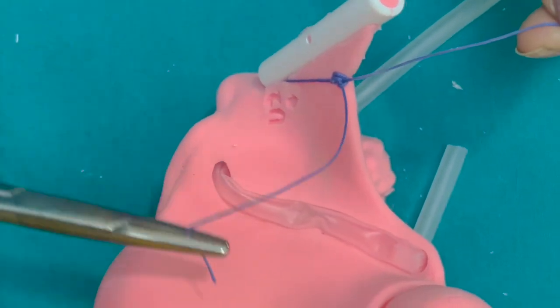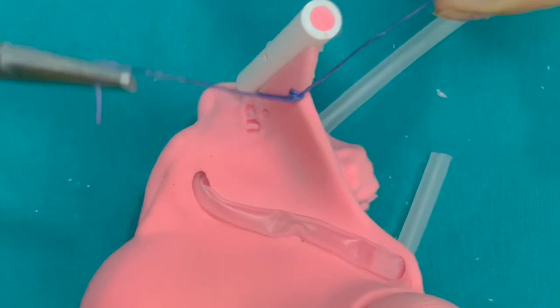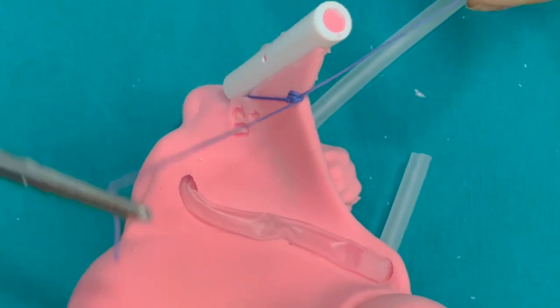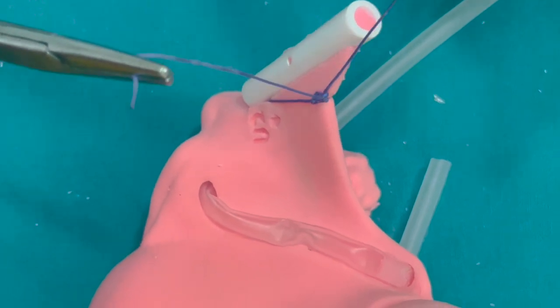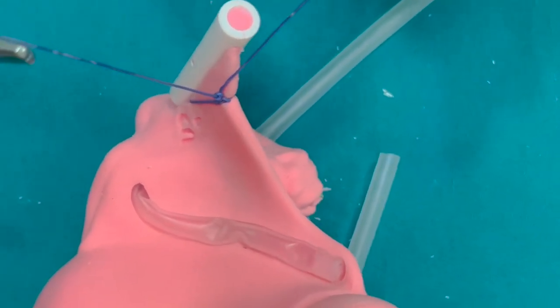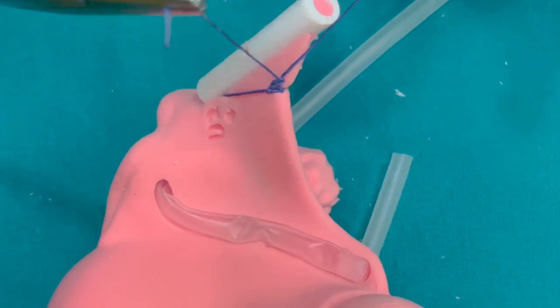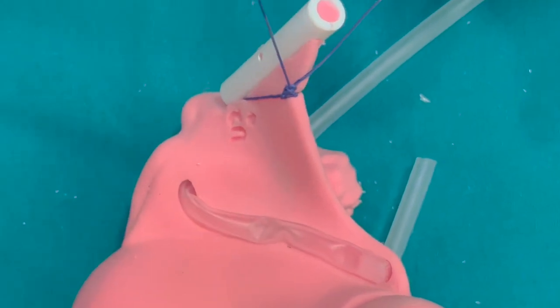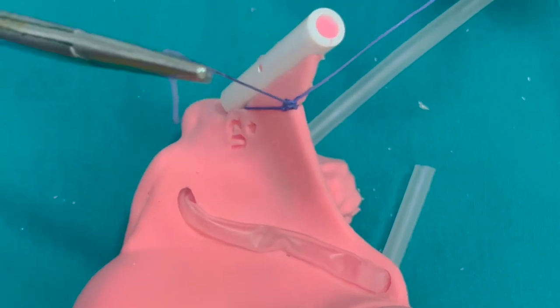For Vicryl suture material, two to three knots are more than enough. One of my teachers used to say the third knot is a 'stress knot' — meaning only stressed surgeons put the third knot. Usually for Vicryl, two knots are more than sufficient.